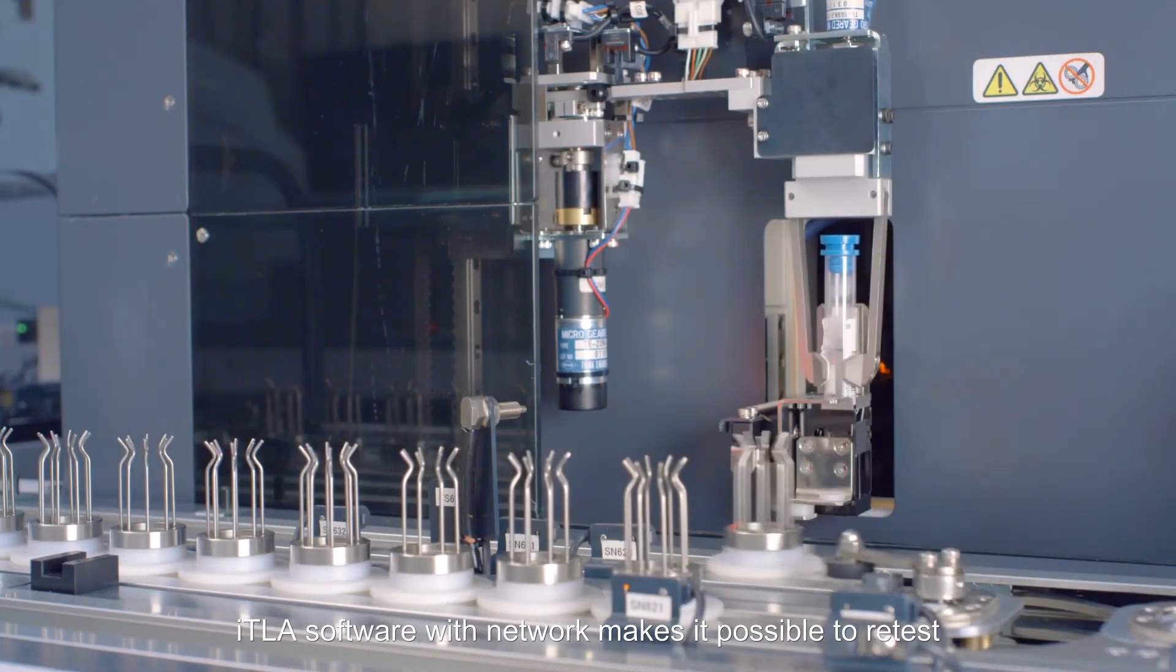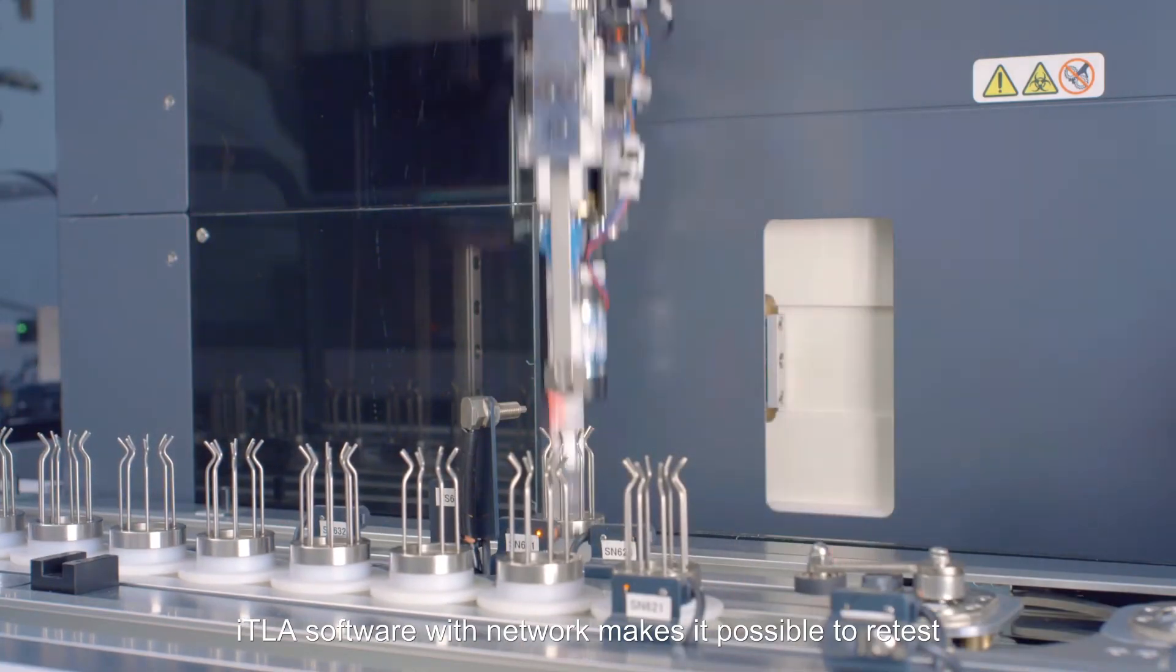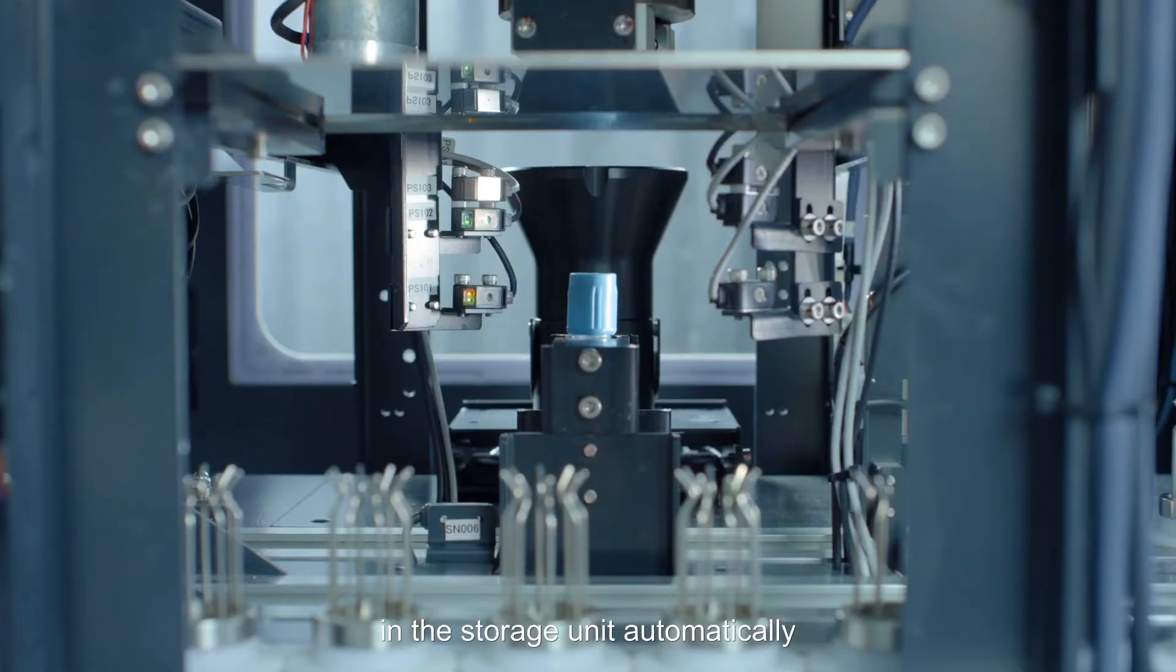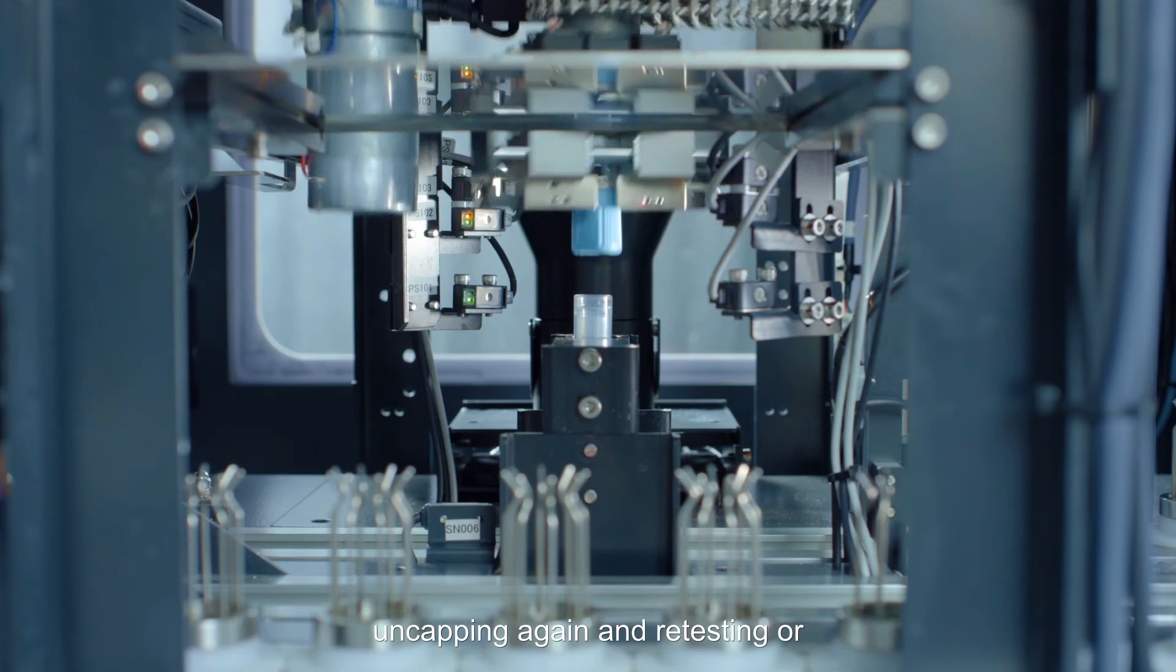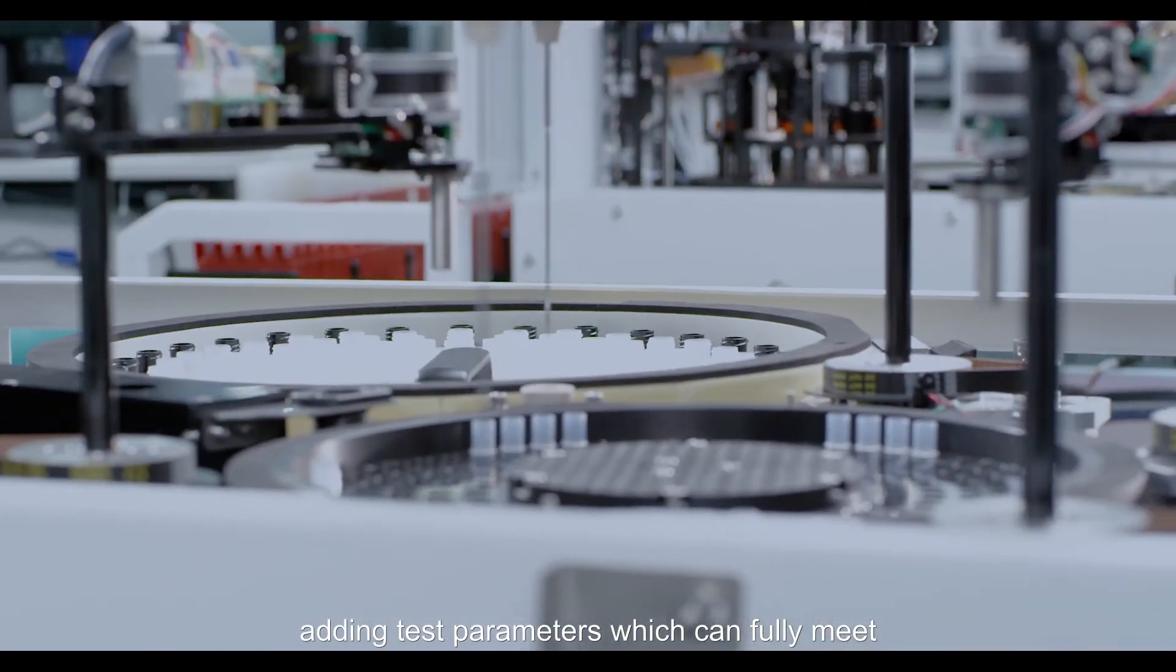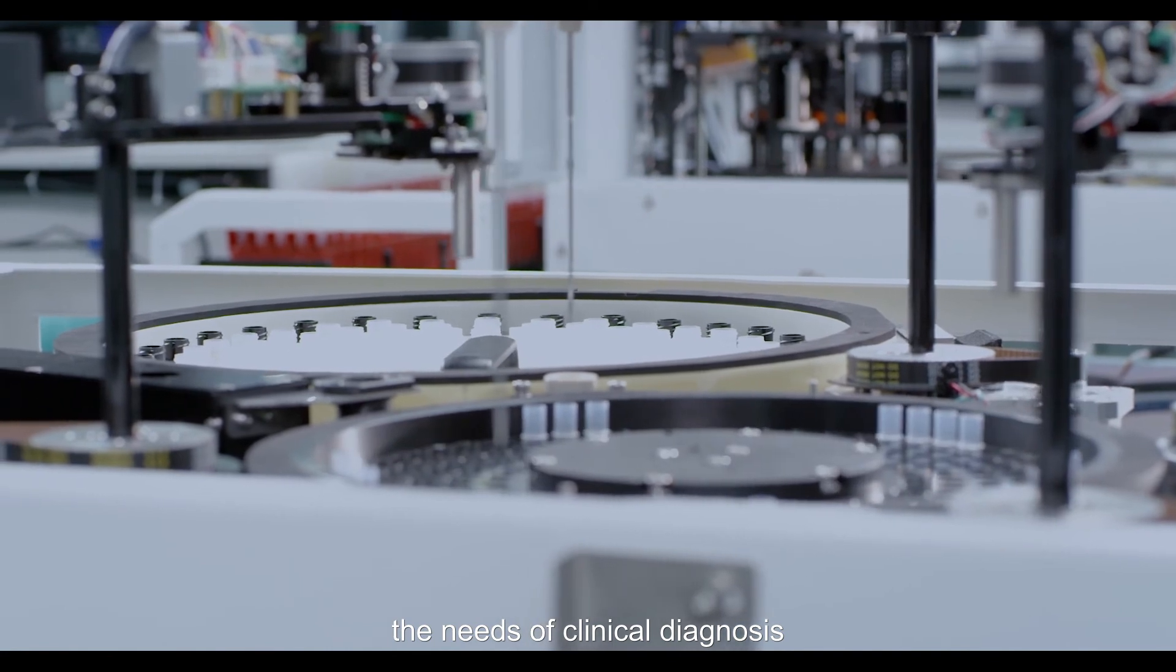iTLA software with network makes it possible to retest through the process of fetching the sample in the storage unit automatically, uncapping again and retesting, or adding test parameters which can fully meet the needs of clinical diagnosis.